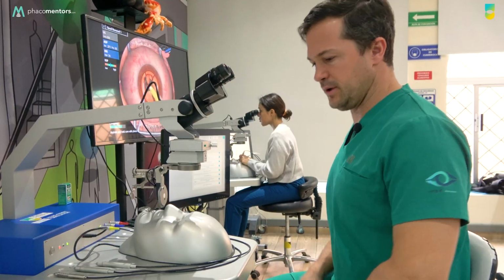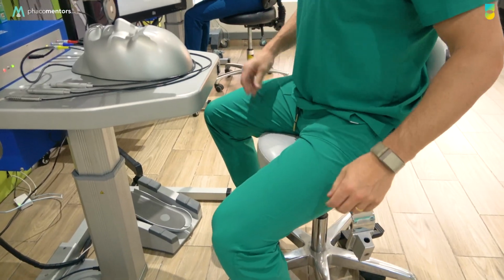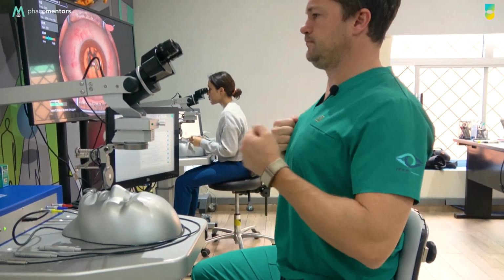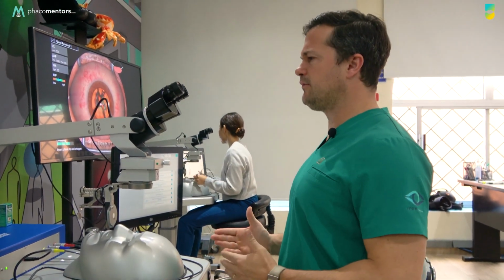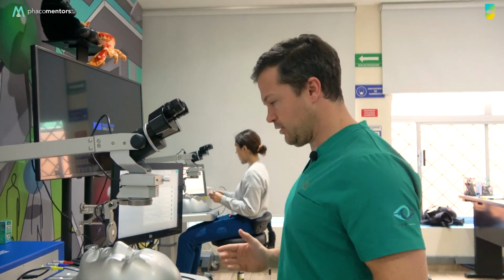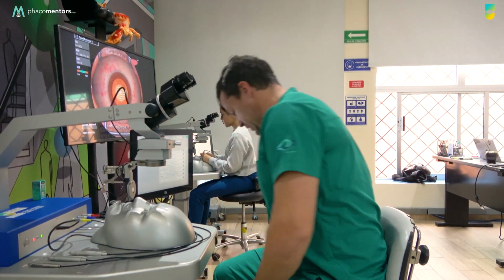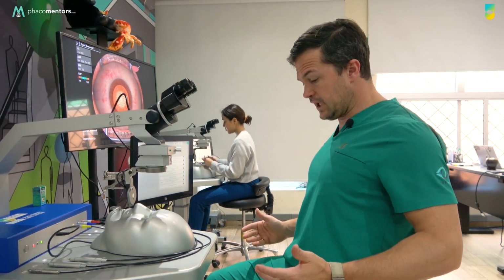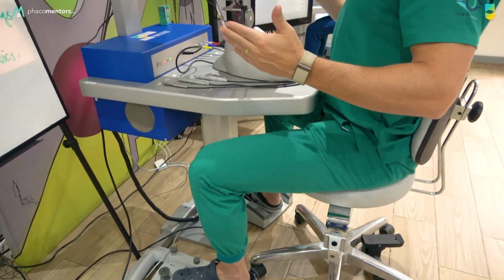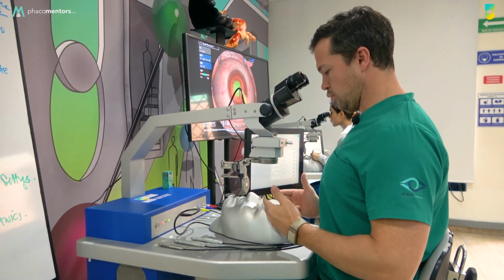going to go for ergonomics, meaning that you're going to have a good chair that you can control the height. You're going to sit back and you're going to put your lumbars and cervicals in what we call the gorilla position. Okay, right here, you need to be comfortable and you need to take care of lumbar and cervicals. You're going to have 90 degrees in your elbows, and this is going to be the correct way to do it. Okay, in order to do that, you need to control the height of the chair, and then you're going to go with the 2 foot pedals that are going to be far away, and you're going to get close to the simulator.